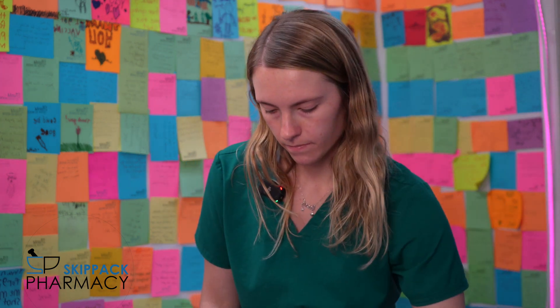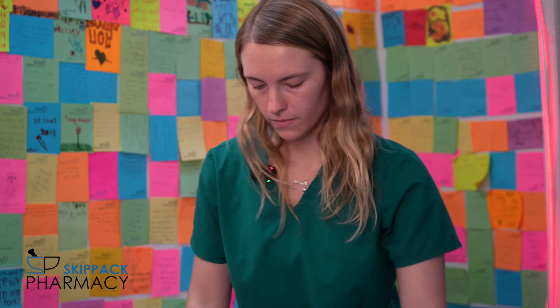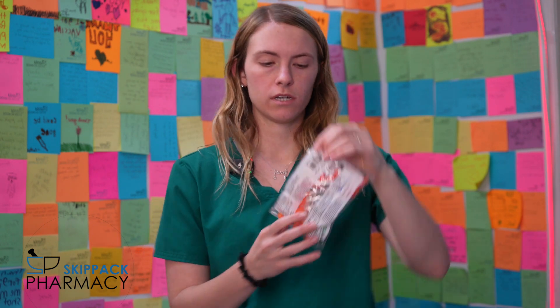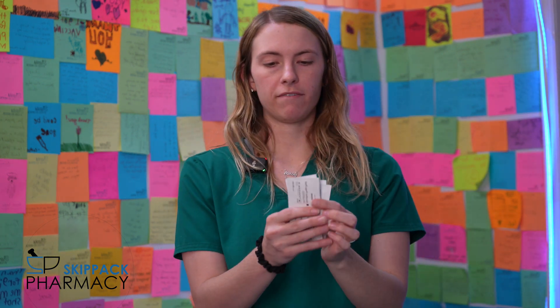Let's get started by talking about what's in your bag. Here is what the bag looks like. In your bag you'll have an information sheet, so if you forget anything that we talked about today you can always refer to it. Next, there's a bag of needles — as you can see there are quite a few in here. It comes with an additional spare just in case they get lost or bent. Next we have five sets of alcohol swabs.